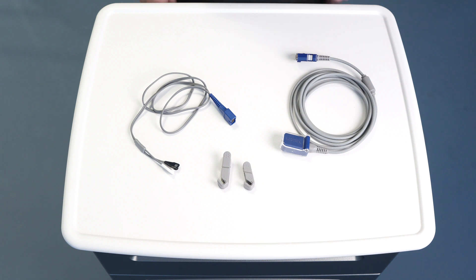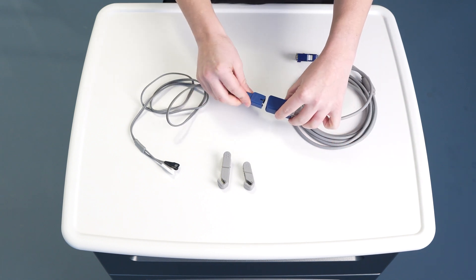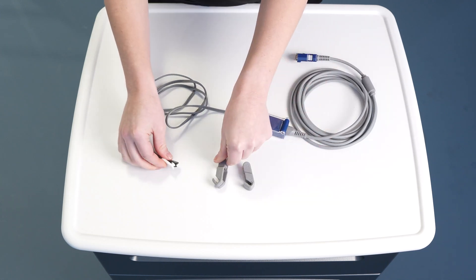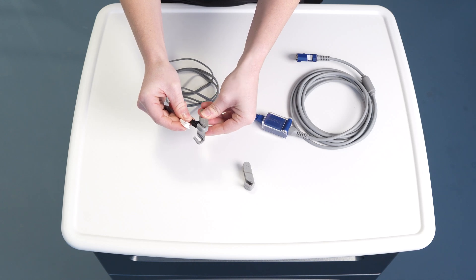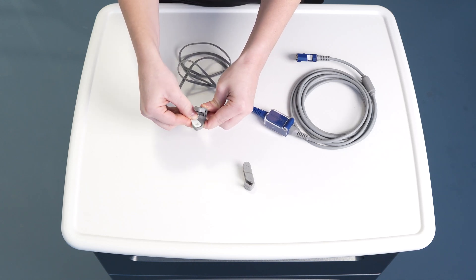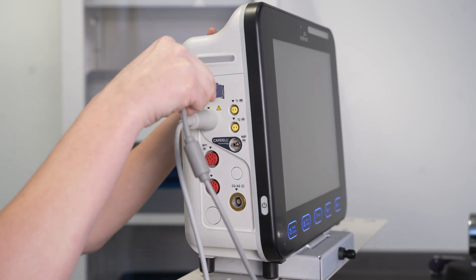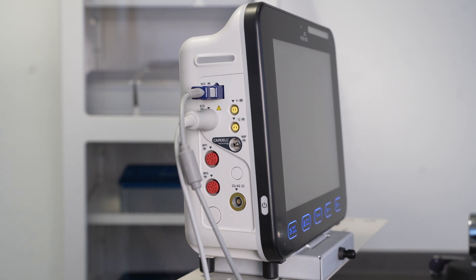To connect the SpO2 sensor, plug the sensor wire into the SpO2 cable and close the clear cover. Next, gently slide the sensor pads into the appropriately sized clip. On the port side of the monitor, plug the SpO2 cable into the SpO2 port.